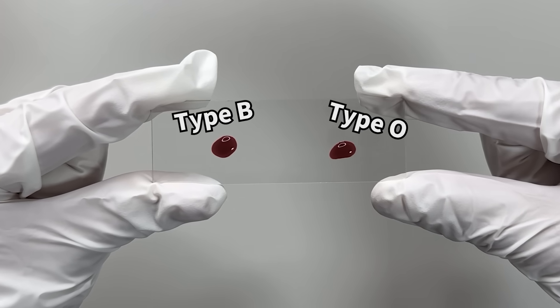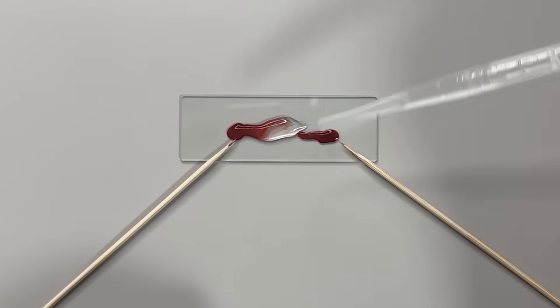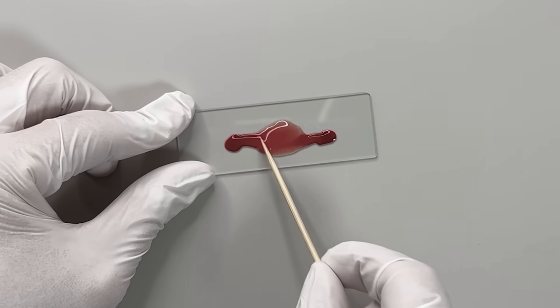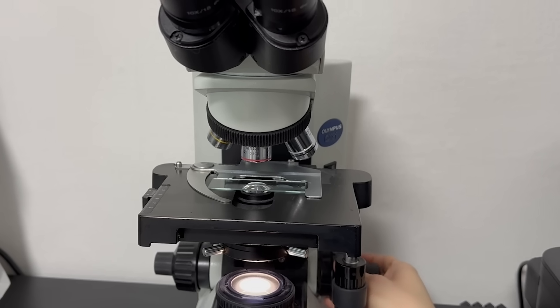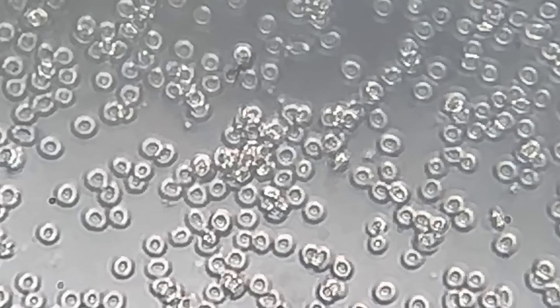Here we have two different blood types. After adding saline solution, we mix them like this and examine them under a microscope. What phenomena can you observe?